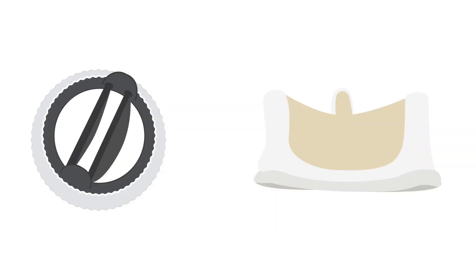Mechanical and stented bioprostheses have three main components: the sewing ring, supporting frame or stent, and leaflets.